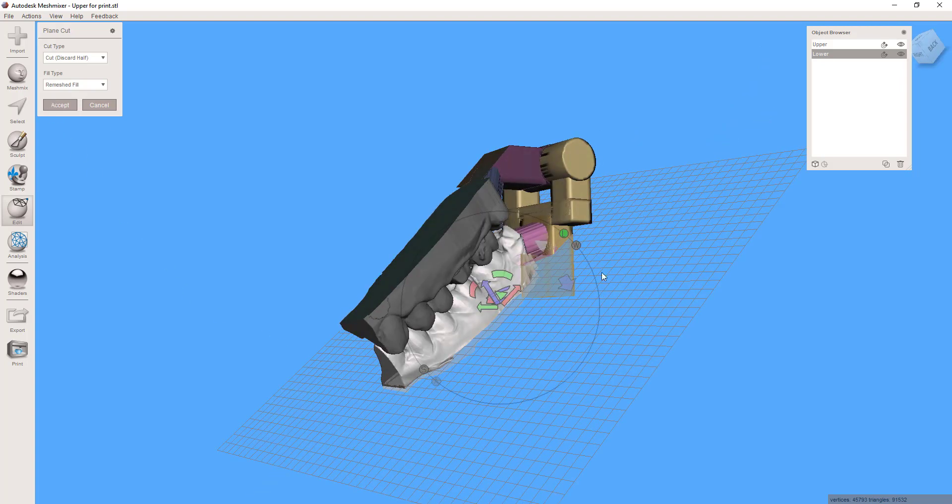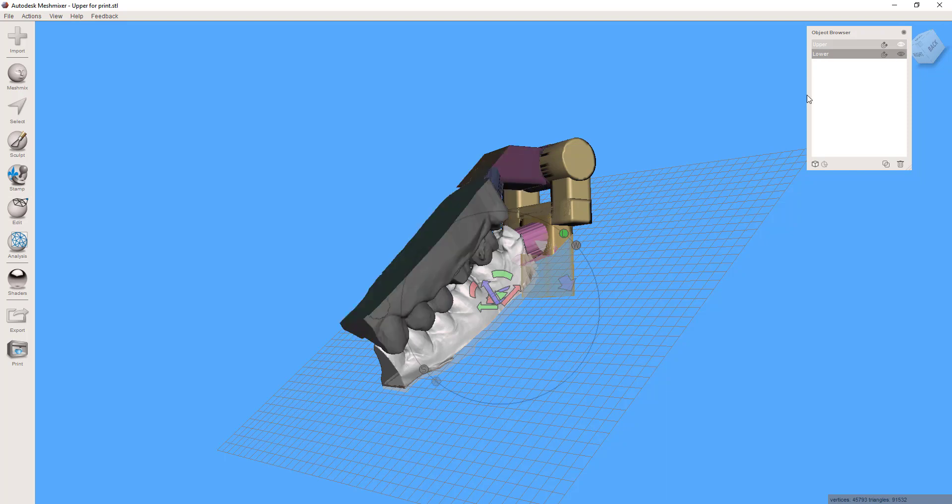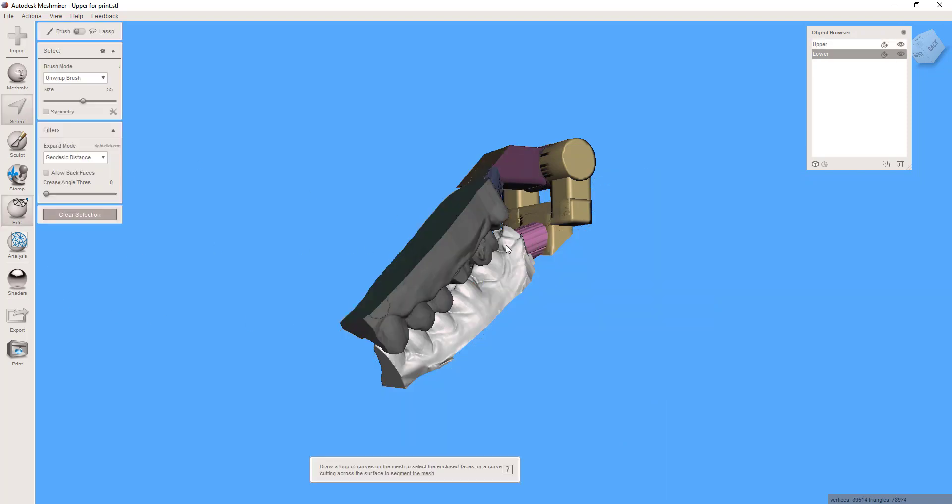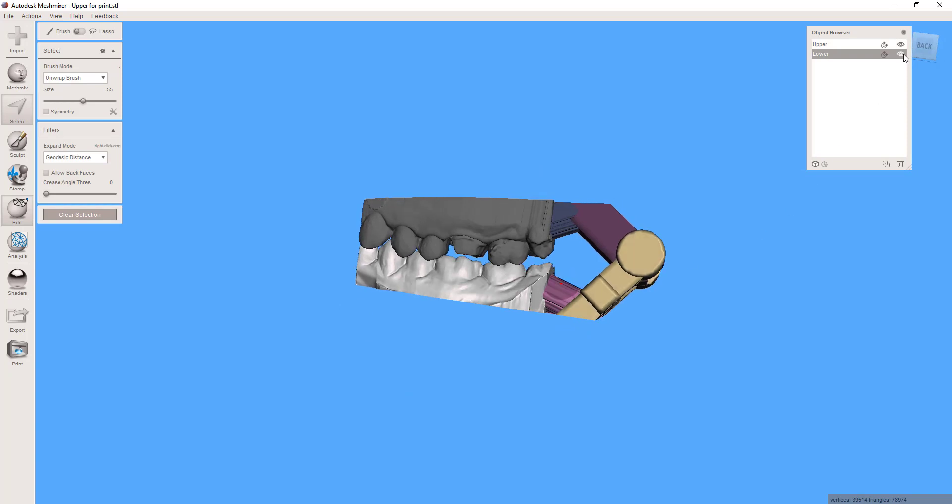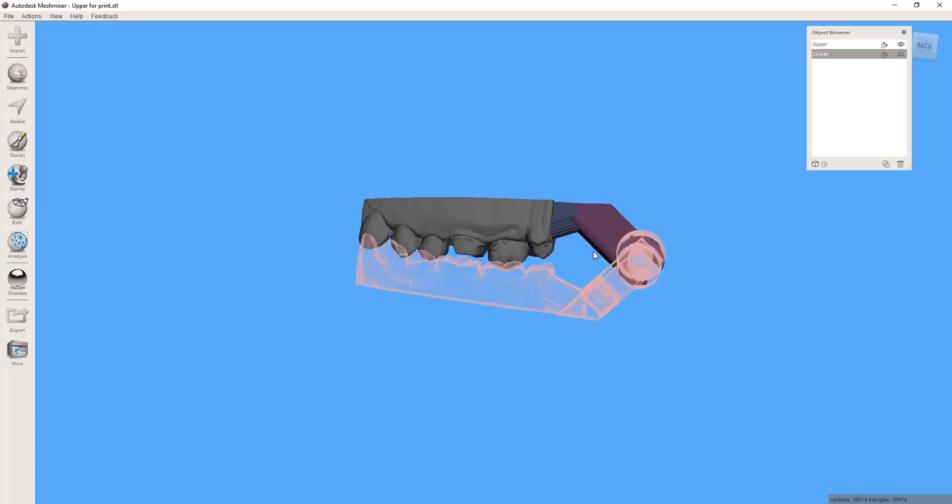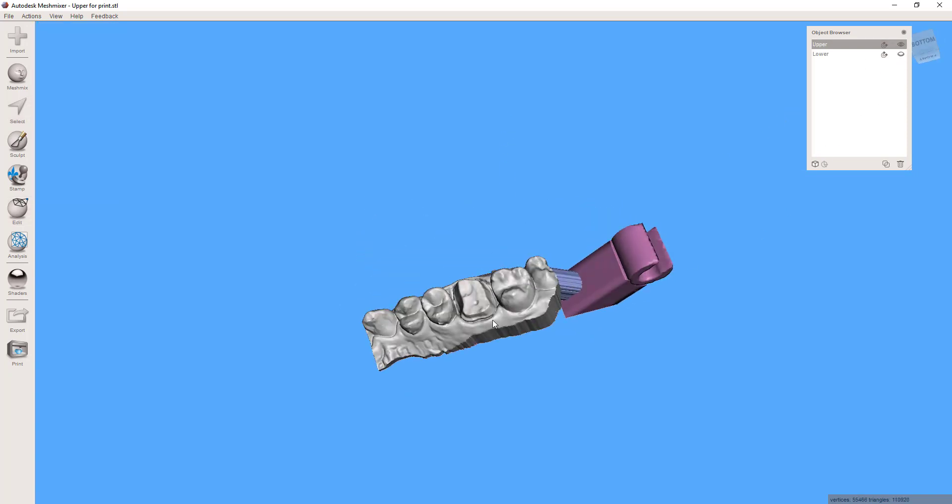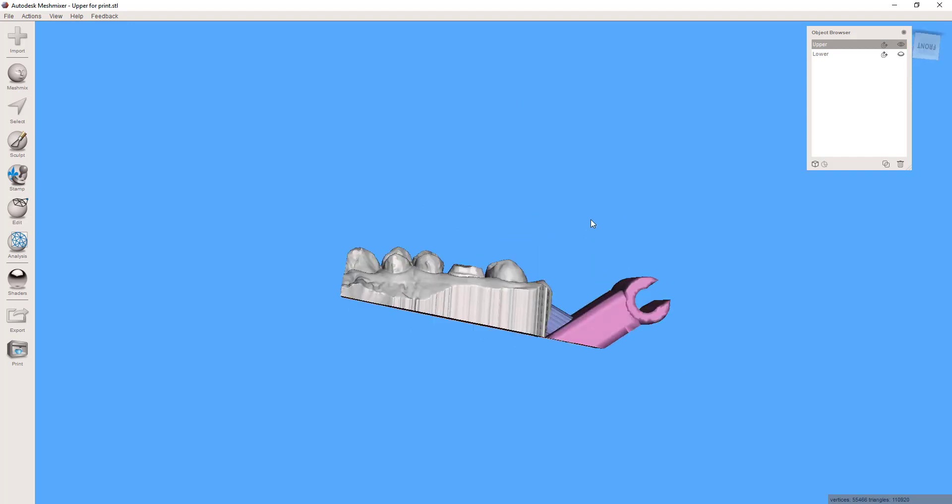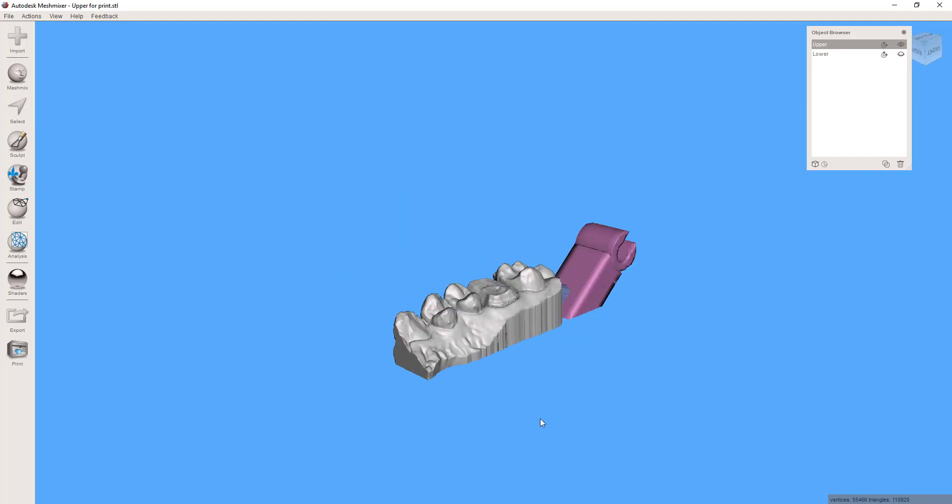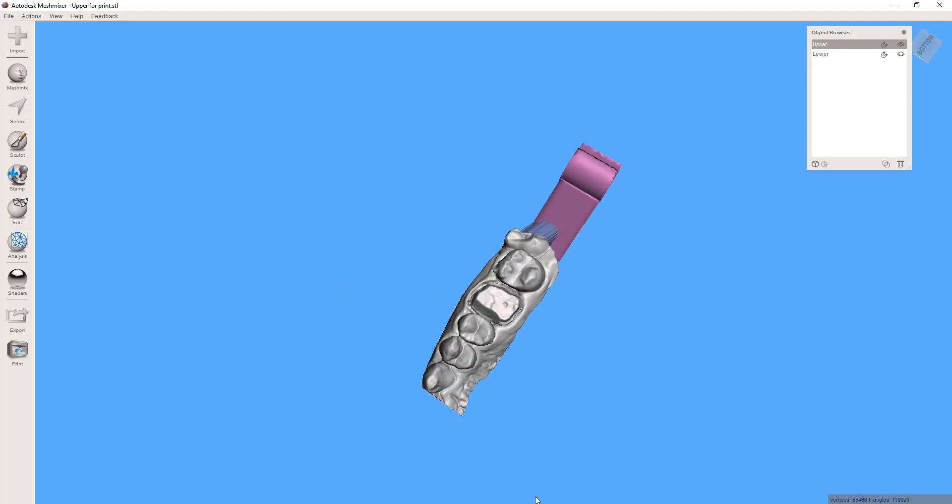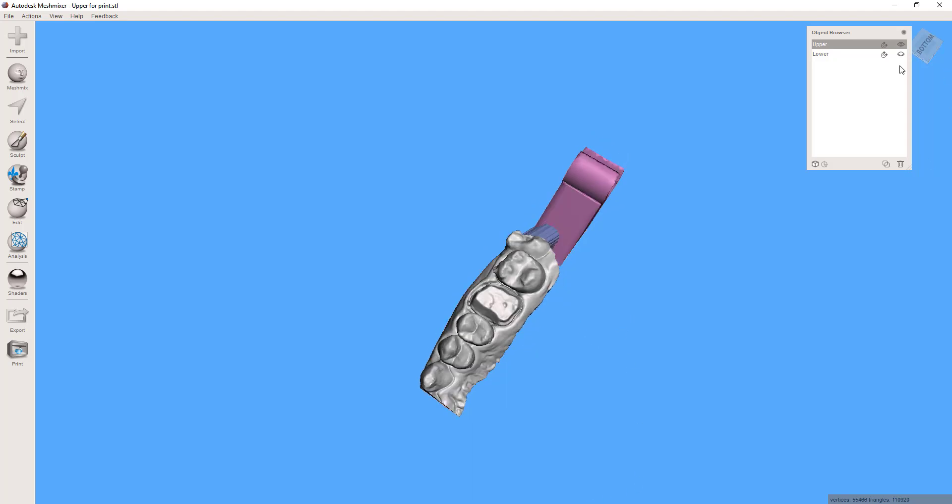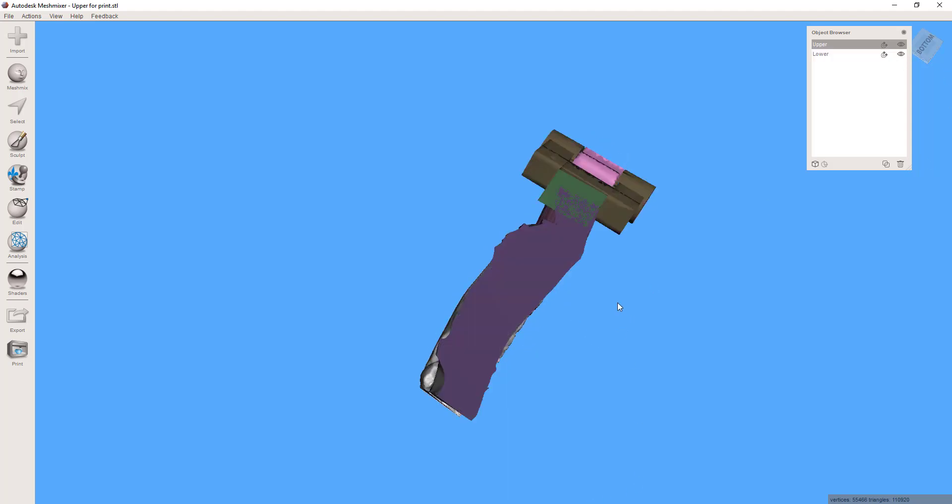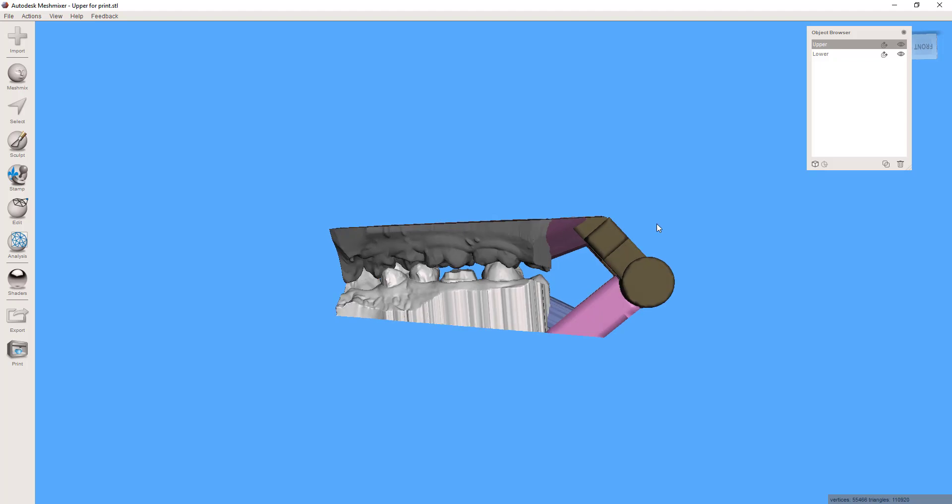So now these parts are ready for printing. Let's accept that. These parts are now ready for printing and they're going to have a nice hinging mechanism. And when you print these independently, laying both of them down on the build plate as so, you'll be able to take these out of the printer, clean them off, and then pop the two portions together. They'll have a nice snap fit and it should close right into the occlusion that you have virtually represented right here. So I hope you enjoy the part.